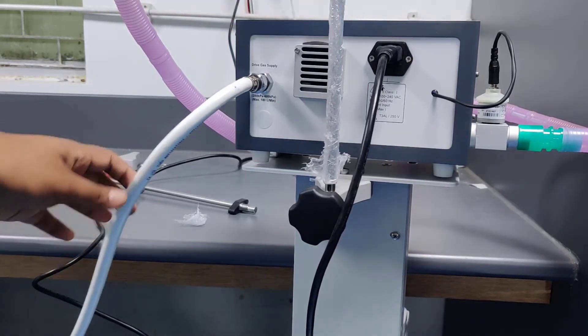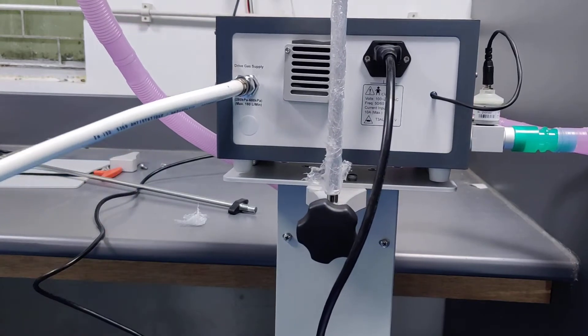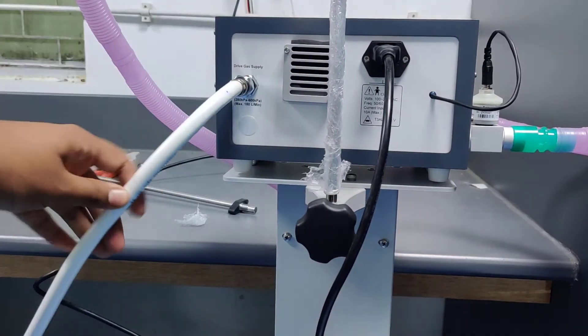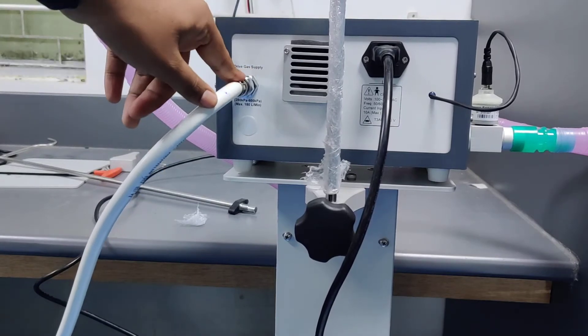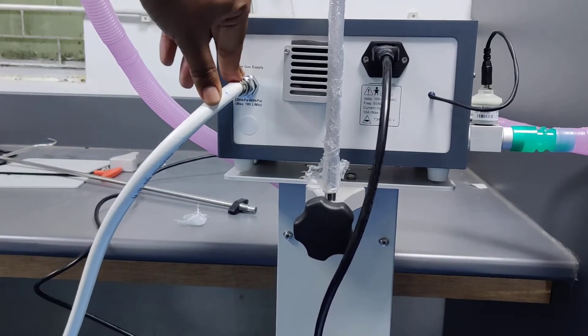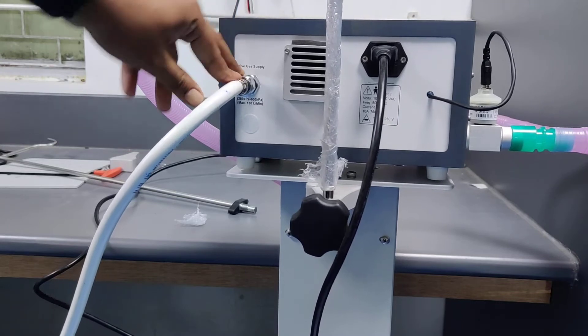As a standard supply we provide 5 filters with the machine. For enriching the oxygen, this is the high pressure connection tubing. This has to be connected to the central oxygen supply of the hospital, or you can also connect it through a cylinder using a regulator.